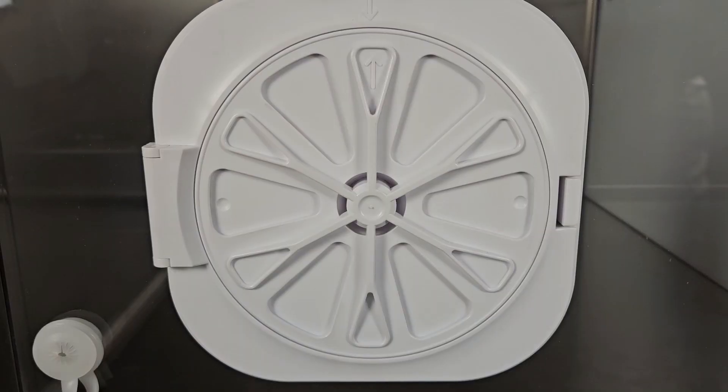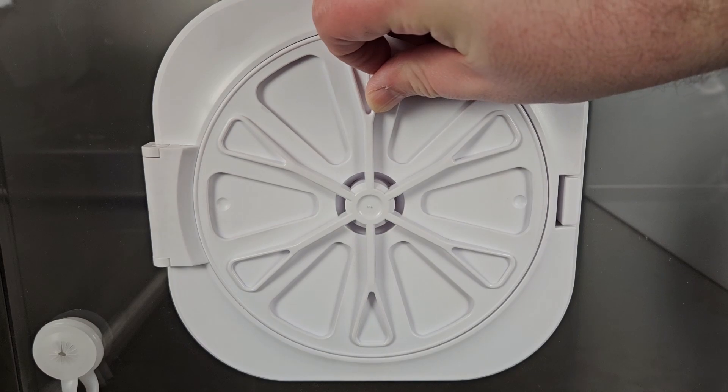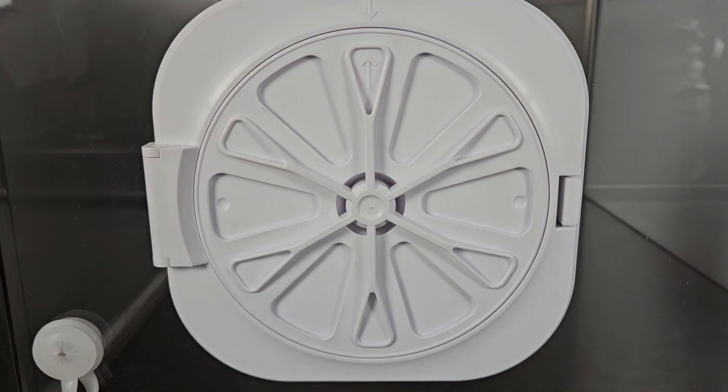Finally, there are rotating panels on the front of each door. These can be turned clockwise or counter-clockwise to allow for additional ventilation and insertion of additional lines or probes, or they can be opened fully to allow for handling of patients or food distribution.